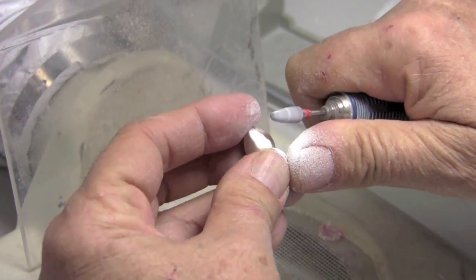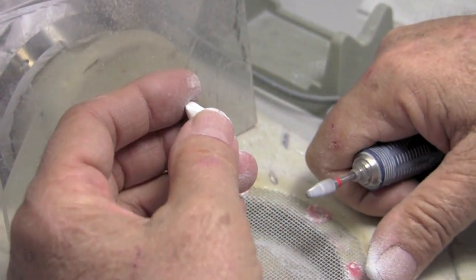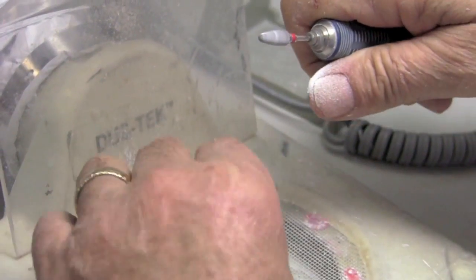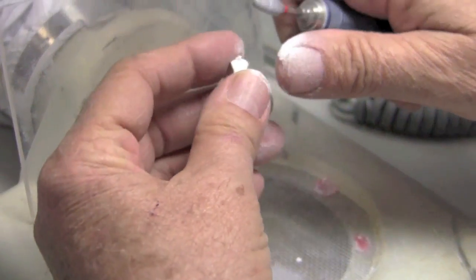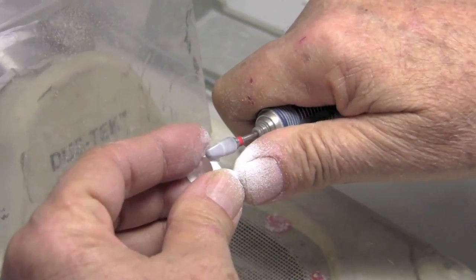but to keep the surface facet free, or I should say facet free. We decided that term should be facet. And smooth and remove the tool marks. And again, we've gotten to where we don't mill anymore in high quality mode.